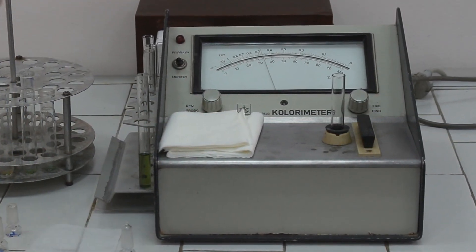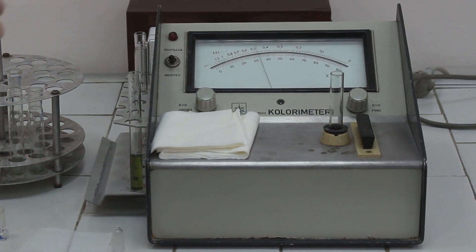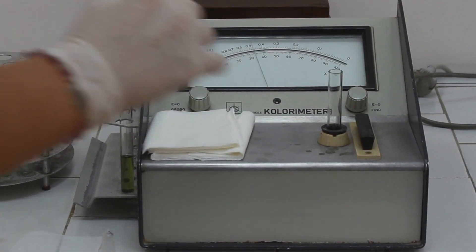Using the equation provided in the manual, calculate the concentration of blood glucose levels.